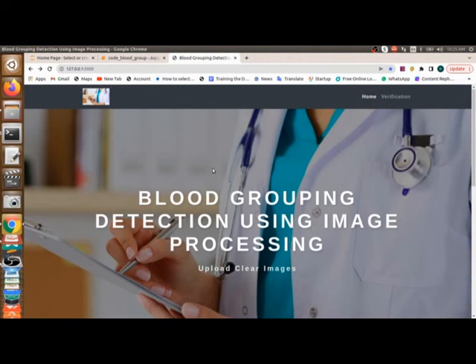This is blood group detection using image processing, a web application built based on an IEEE paper. We made many improvements and changes to the base paper and implemented them here to get a good result, presenting it as a web application.